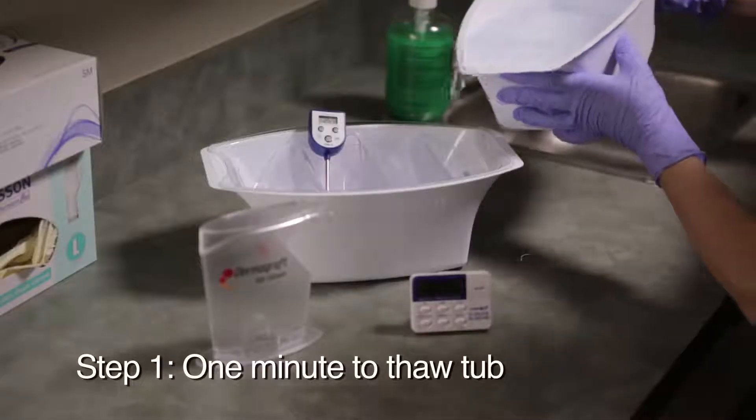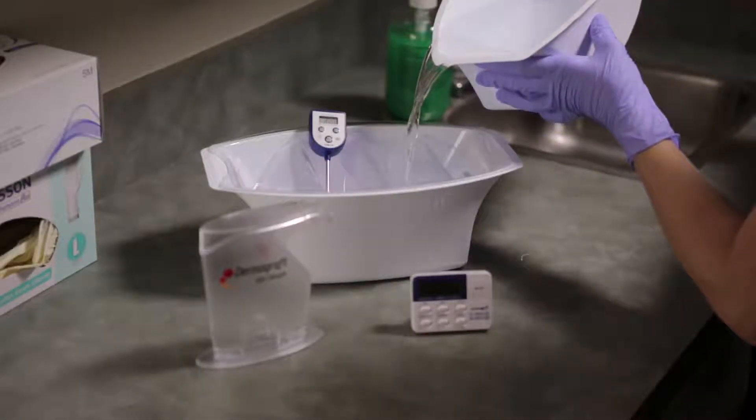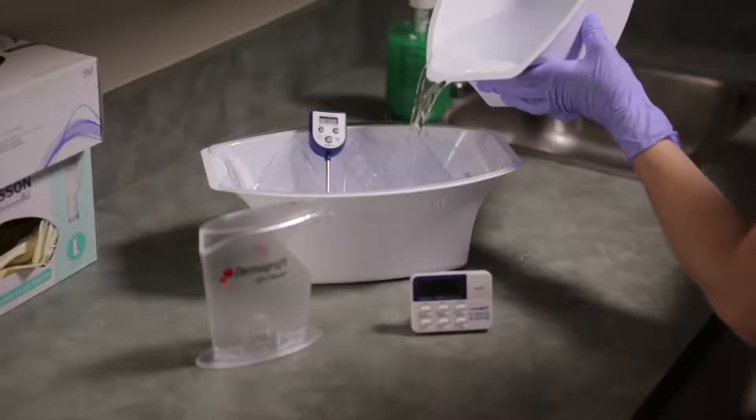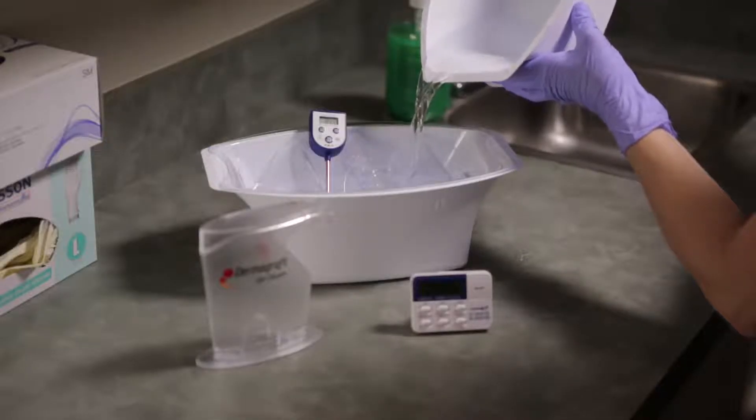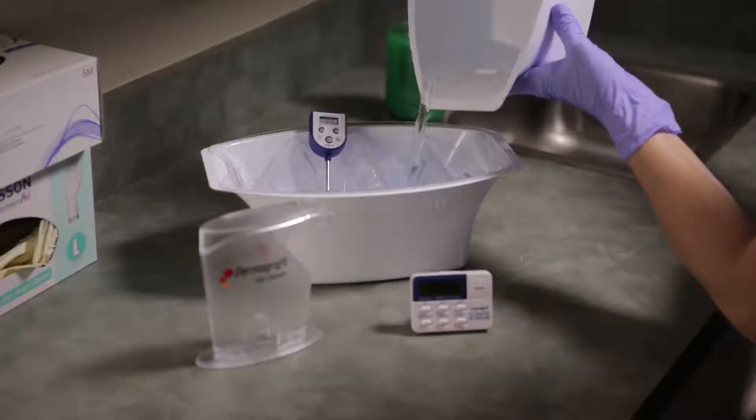Step 1: One minute to the thaw tub. Most critical to the product viability is that there is no more than one minute from the time the Dermagraft is taken out of the shipping container or an appropriate storage freezer and placed into the thaw tub. For this reason, you should prepare the water first, avoiding any delays.